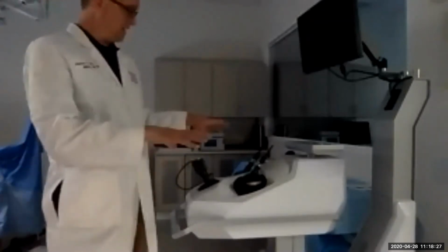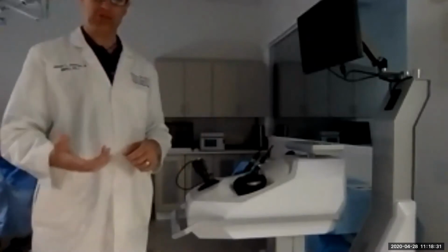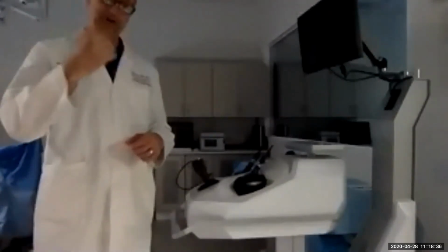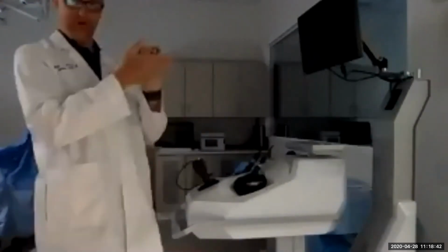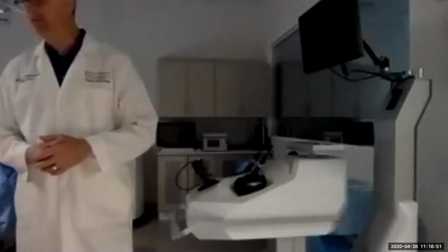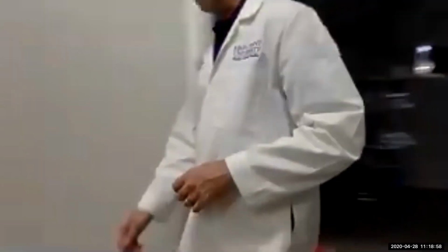This setup right here teaches our students to be able to use that camera, which is a lot of times what a student or an assistant may be doing. And it's a little bit interesting to learn to do that because you're having to work kind of upside down and backwards. When you move the camera one way, it pans the view a different way. It's hard to explain on video, but it's actually very much like a video game. And so this machine lets our students practice those skills. And so that's a new addition that we've got in here. So now we're going to take another little walk.